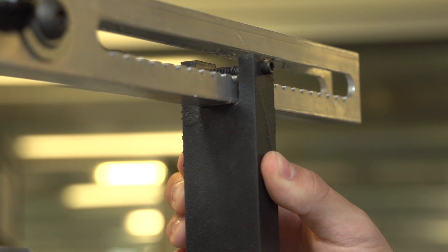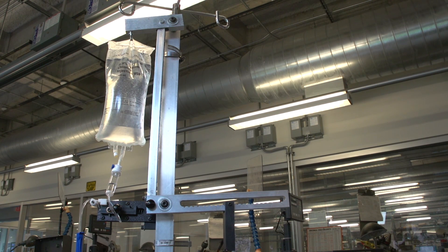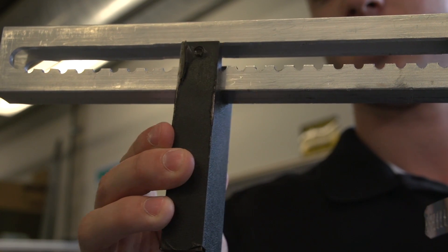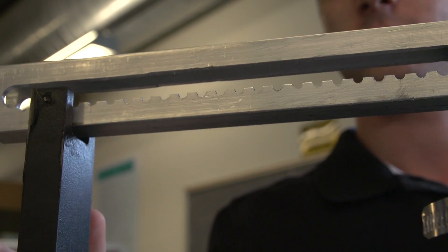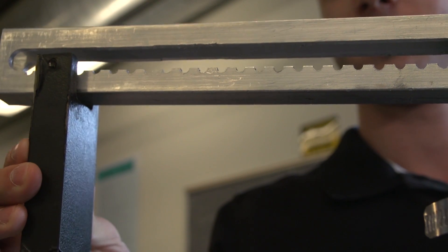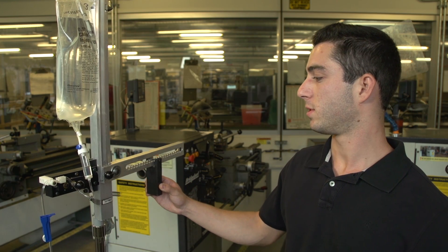Here's your IV bag with your IV line. The first thing you would do is equilibrate your IV bag — that is defined as when the lower lever arm is horizontal. Once you've equilibrated your system, you would move the counterweight inward by the number of notches that correspond to the volume you'd like to dispense. Each notch corresponds to 50 milliliters.